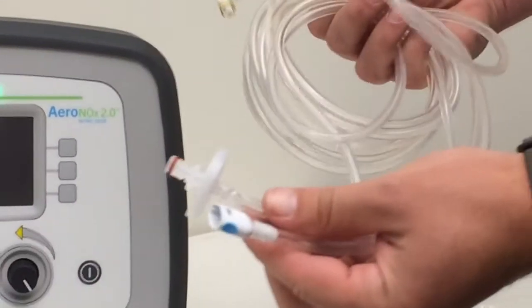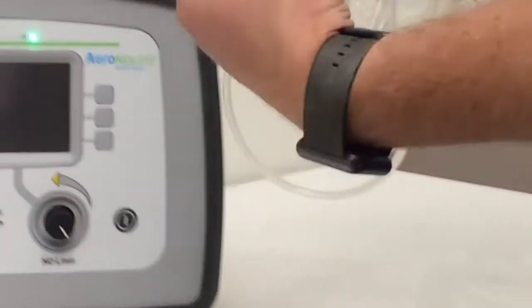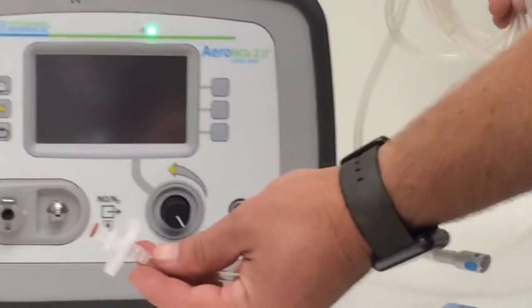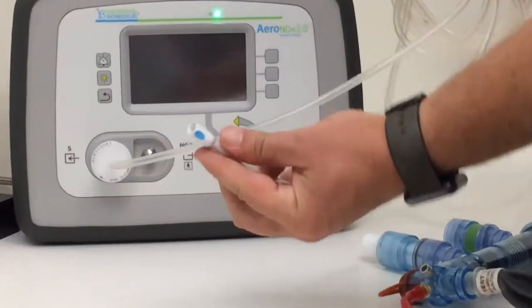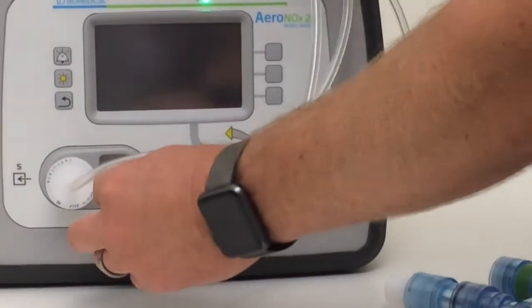When it comes out of the package, it's two tubes. The disc goes into the sample port, just like that. And then the flat piece goes for the delivery port, like that.